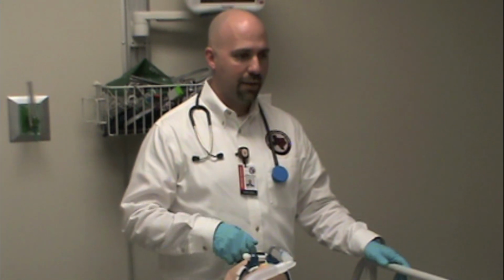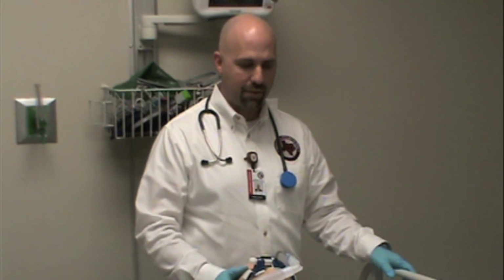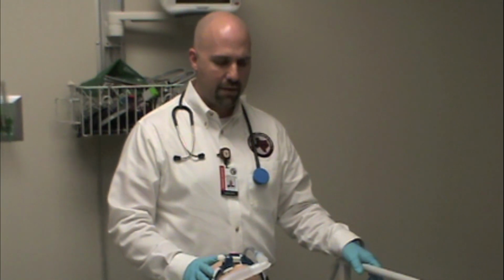If the tube gets pulled and gets placed in the esophagus, you'll never know until the patient's vital signs really crash if you're not watching their end-tidal CO2. So end-tidal CO2 is really, really important. If you have any questions about the medications that you're giving or what the best clinical course of care for the patient would be, again, the nurse at the bedside, the sending physician, or medical control would be great resources to utilize to figure out exactly the best clinical course for the patient.